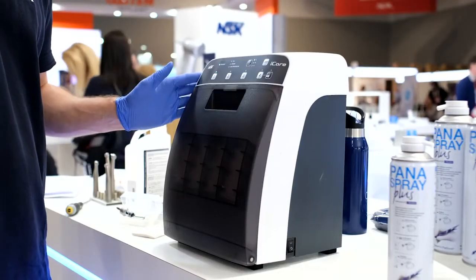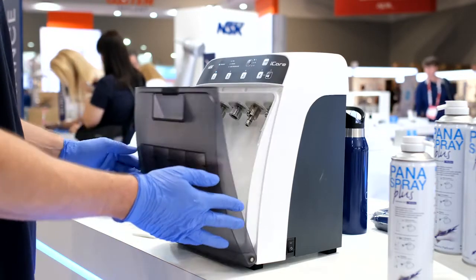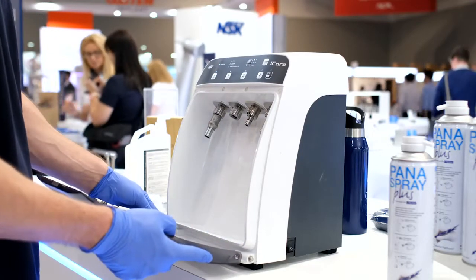You can easily detach the door to clean it separately with tap water. When detaching and reattaching the door, make sure the unit is on a level surface and be careful not to drop the door or the unit.